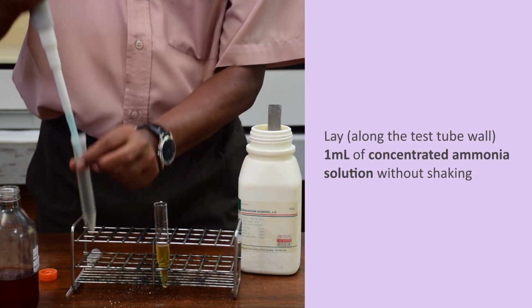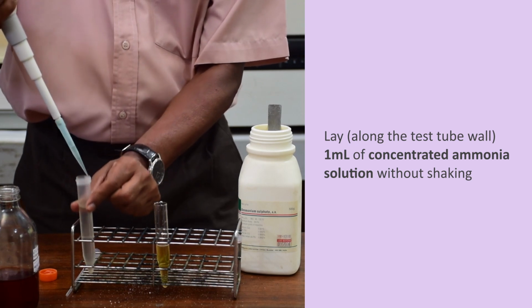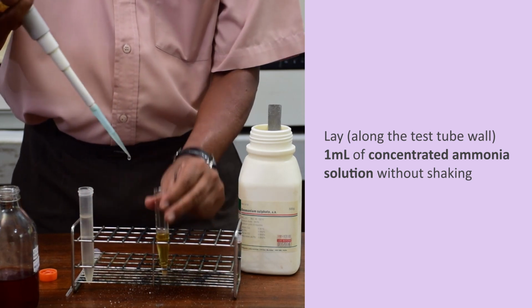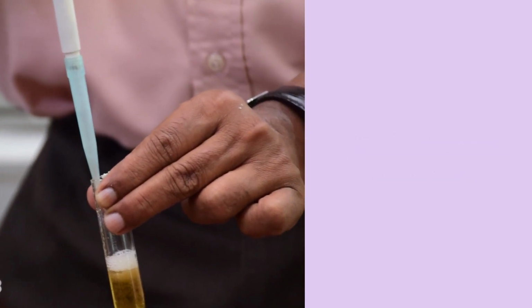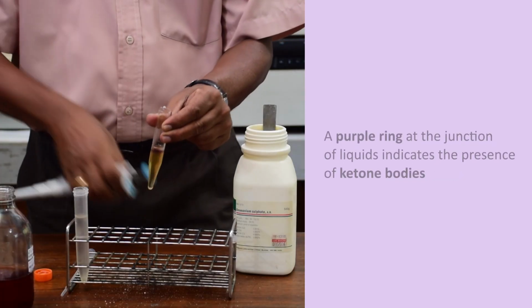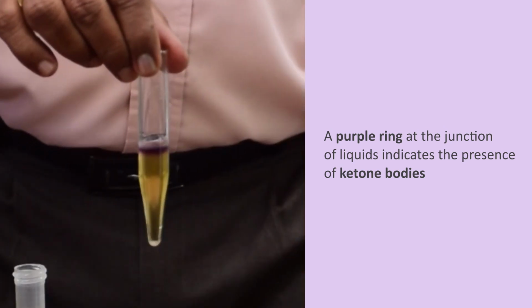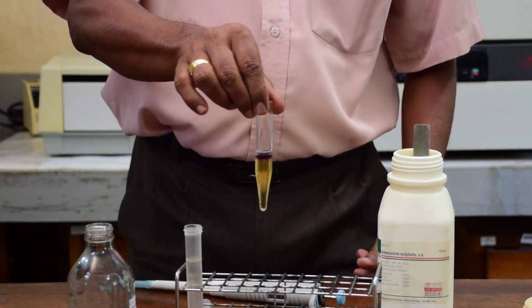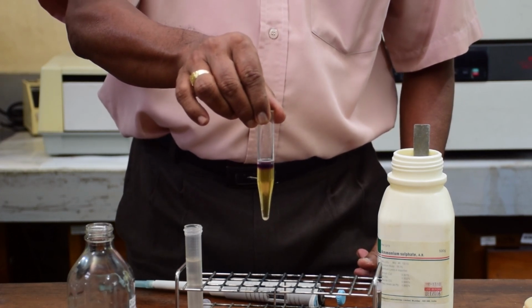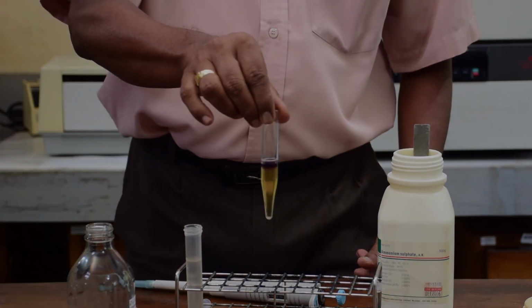Lay along the test tube wall 1 ml of concentrated ammonia solution without shaking. A purple ring at the junction of liquids indicates the presence of ketone bodies. You can appreciate that the sample is positive for ketone bodies. Rothera's test detects only acetone and acetoacetate.